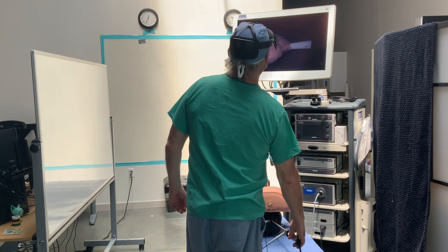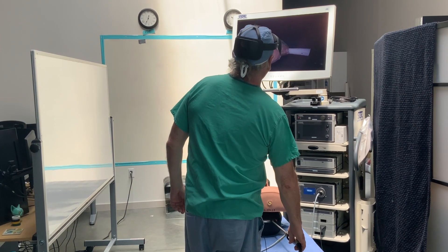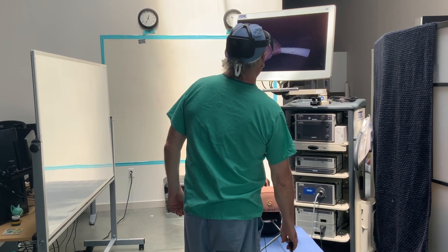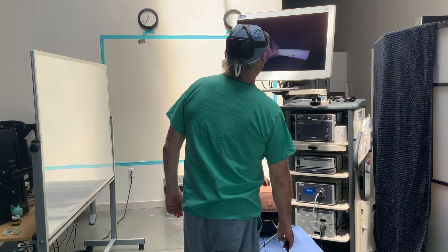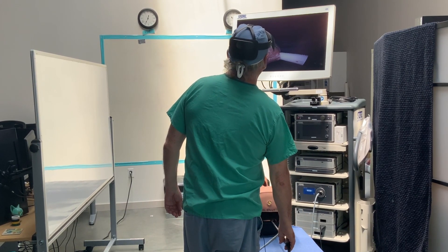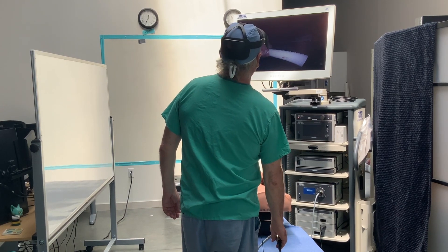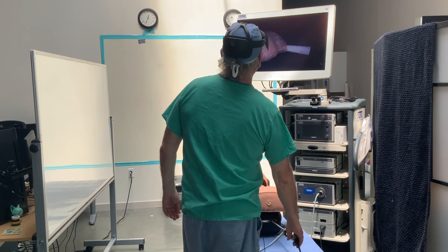You can see we have an excellent view of our rubber kidney inside the box here. Excellent depth of field, excellent visualization, and excellent resolution.